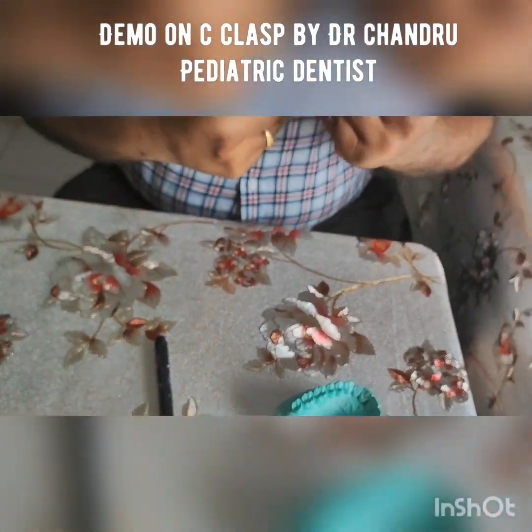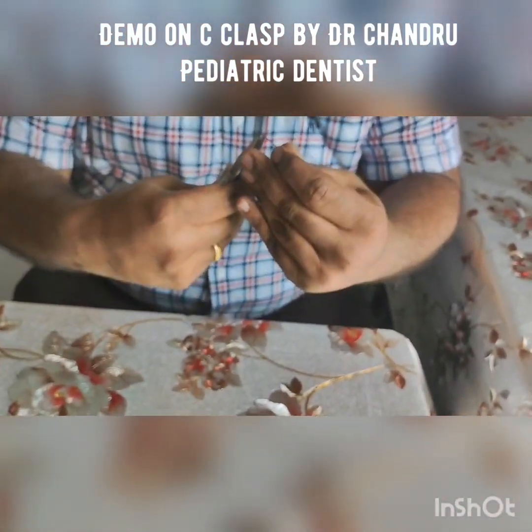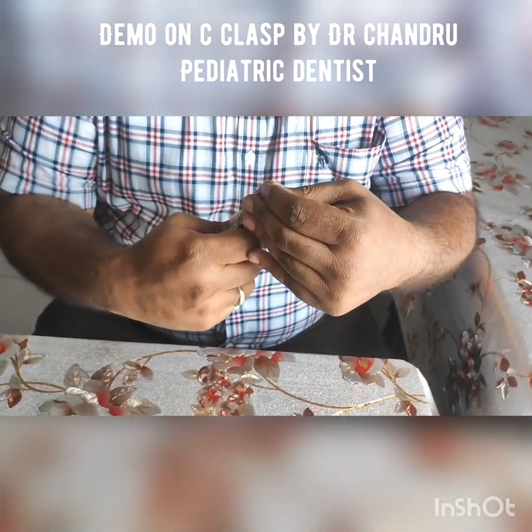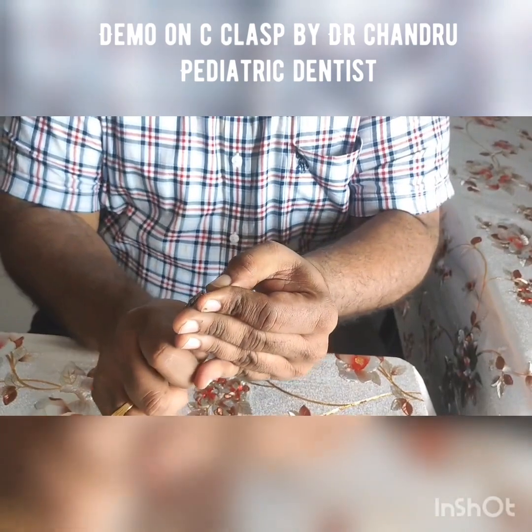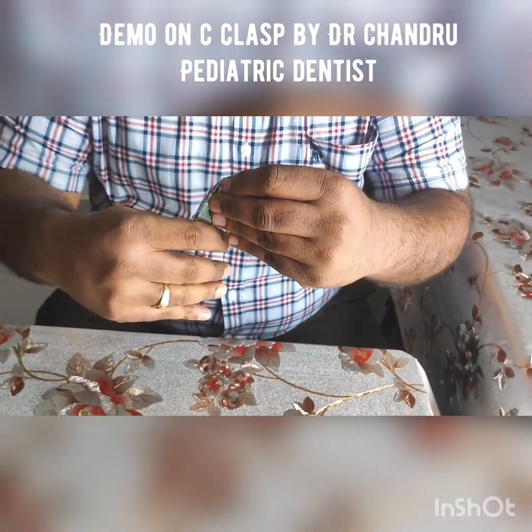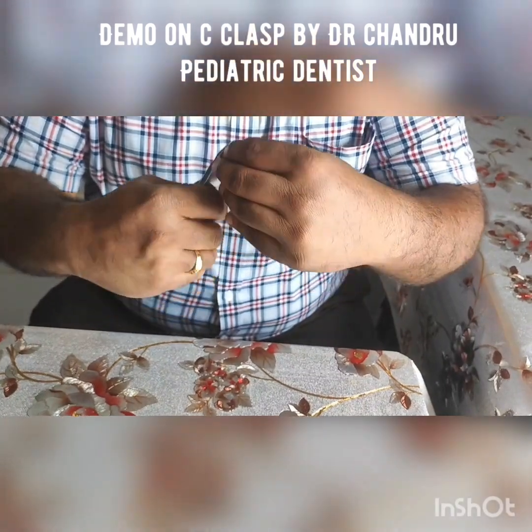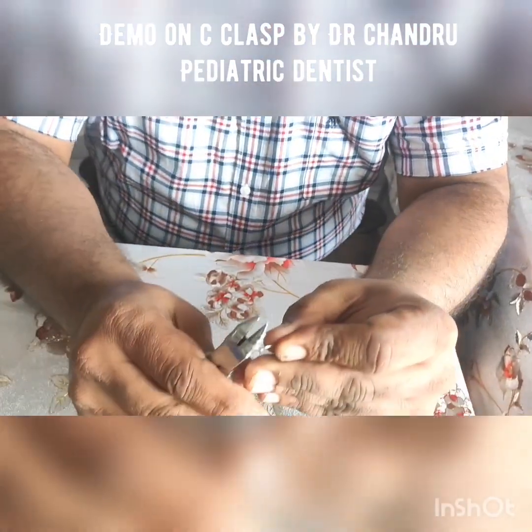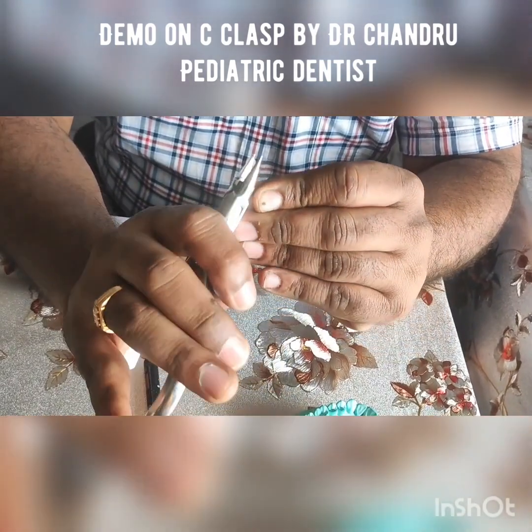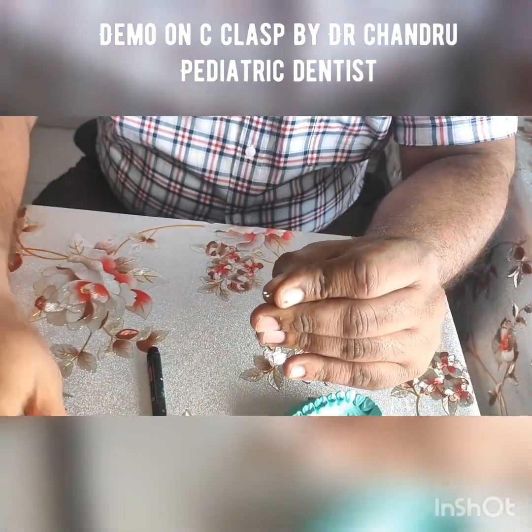So after the close adaptation on the palatal surface, try giving a tag arm, and this tag arm can be given in any different shape you like, and close the loop you have opened up on the tag arm.